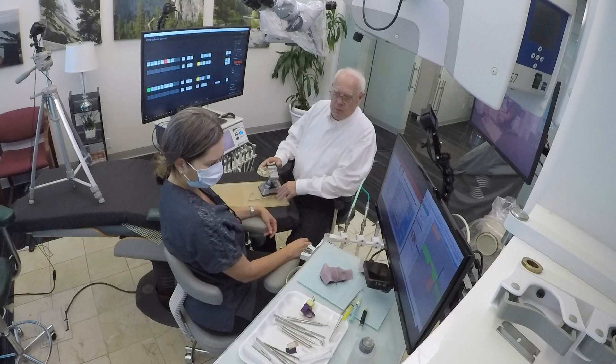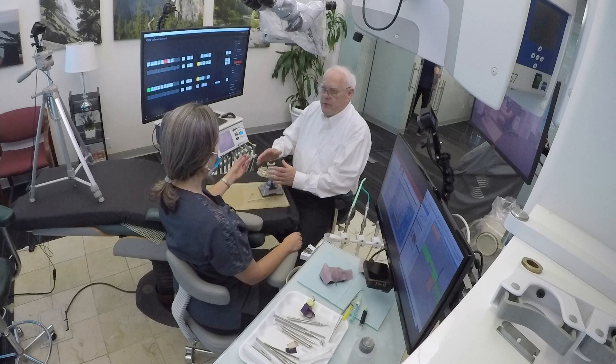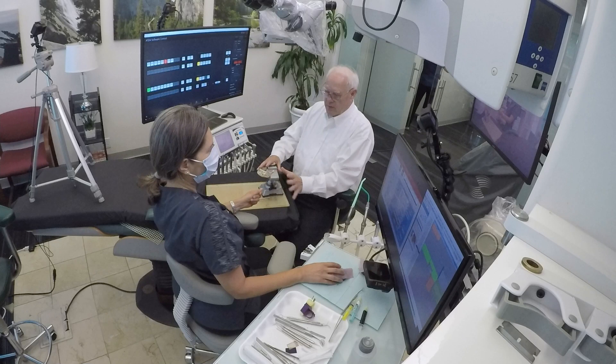Any questions about how this works? You won't get it until we go through it many times, but basically you've got the oral cancer screening, the diagnostic page, and then you move to the multi-tooth.